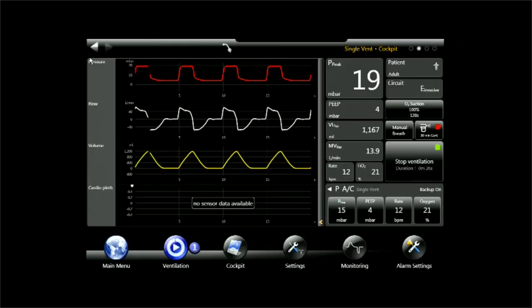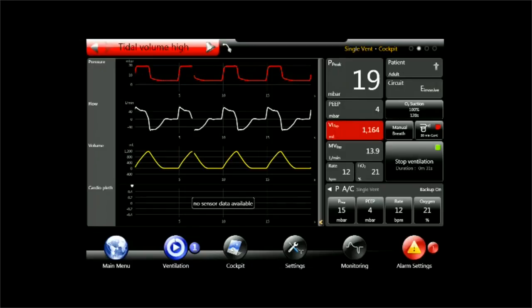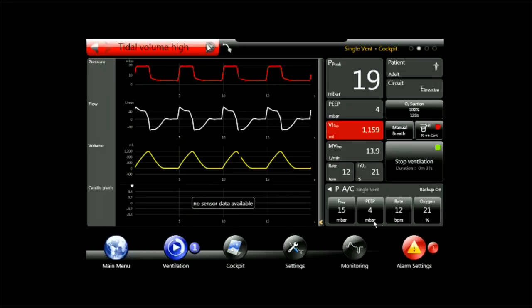The alarm message will be displayed in the upper left corner where I can also click on it to silence it. So I can silence the alarm message.